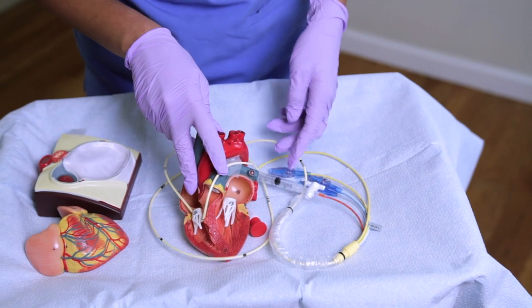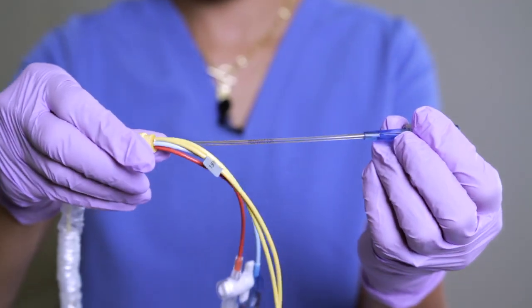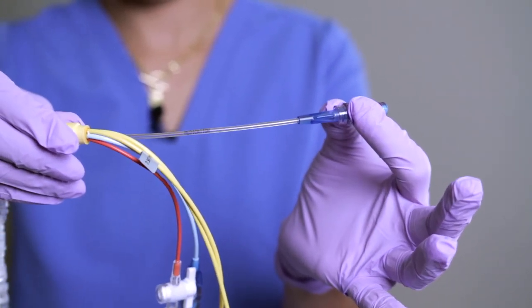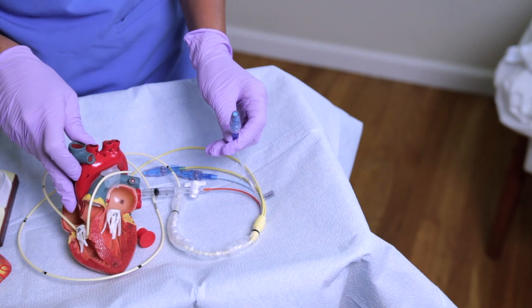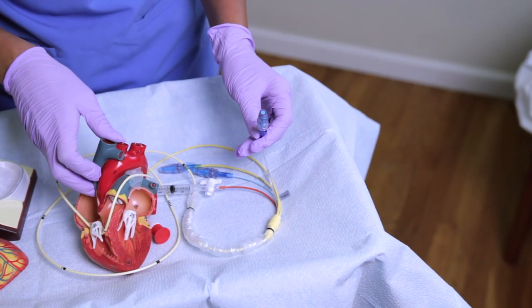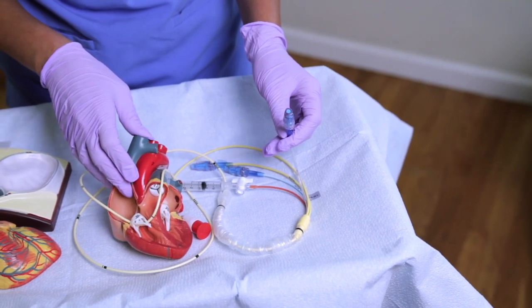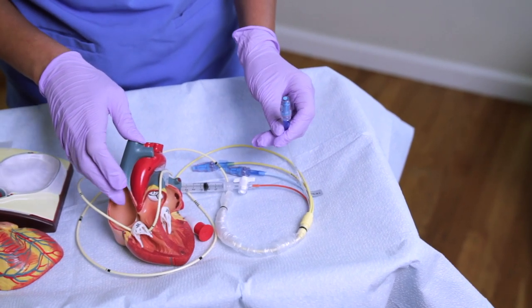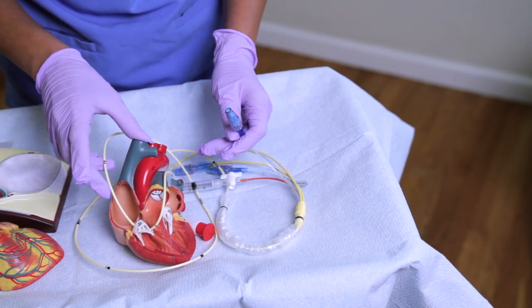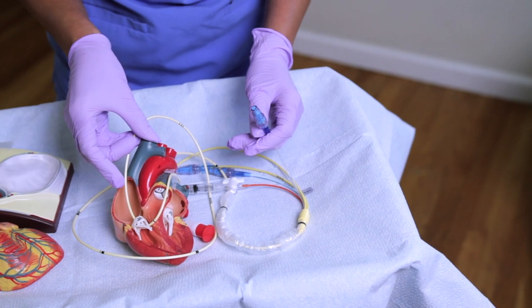Next is your white lumen — it can also be clear. This is your medication port, where you can access to infuse medications. This is also known as the proximal infusion port and it terminates in the atrium or sometimes the vena cava. If you were to inject medication it would go into the right atrium.